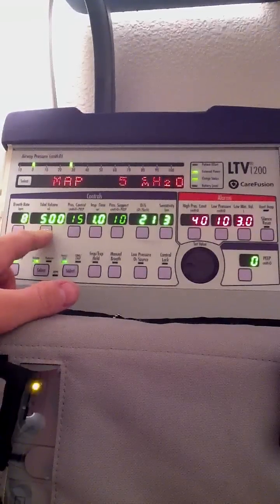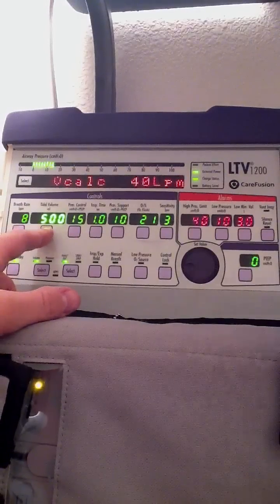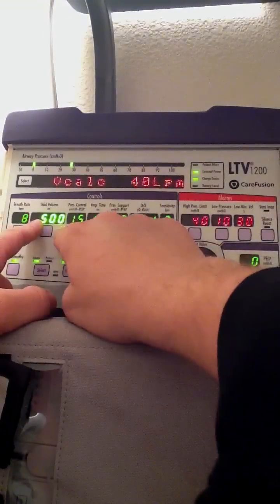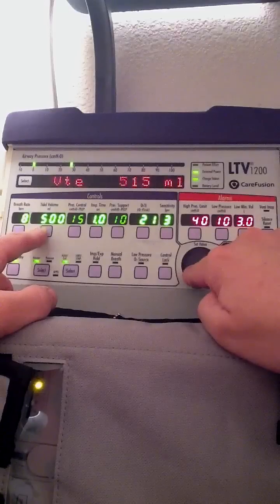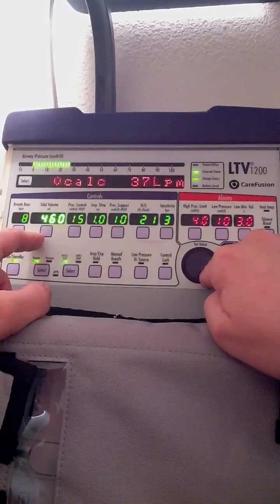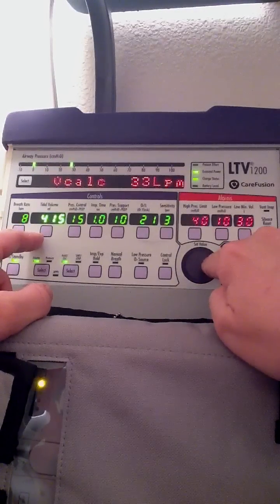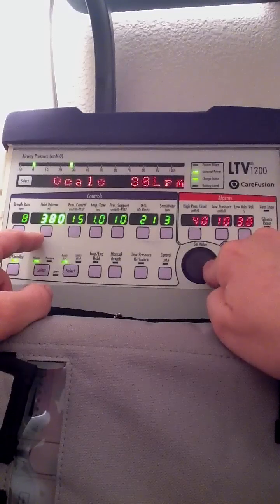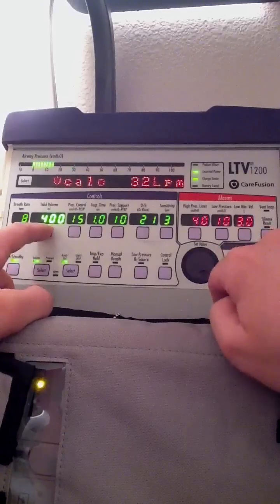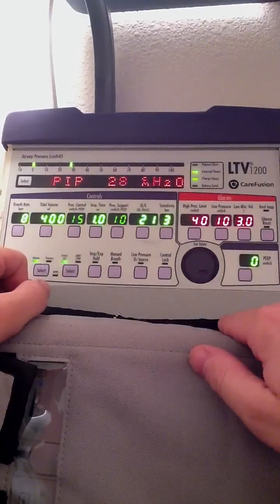Likewise, let's say I want a tidal volume of 400 milliliters. I select that, everything else dims out, and the tidal volume stays lit. I'll go ahead and decrease it to 400 milliliters, hit select again, and it accepts it.